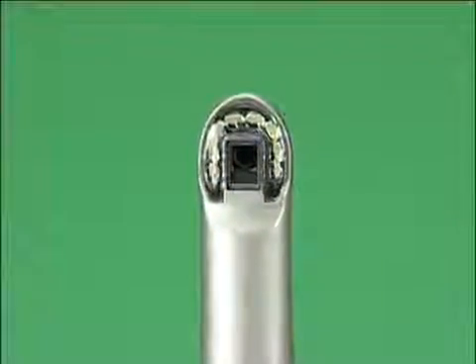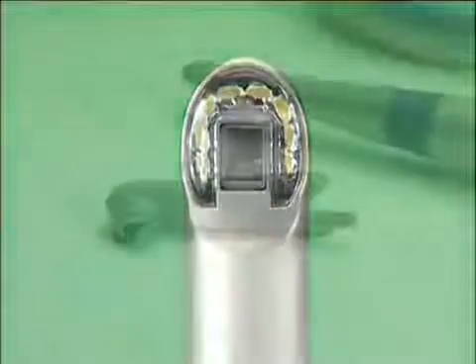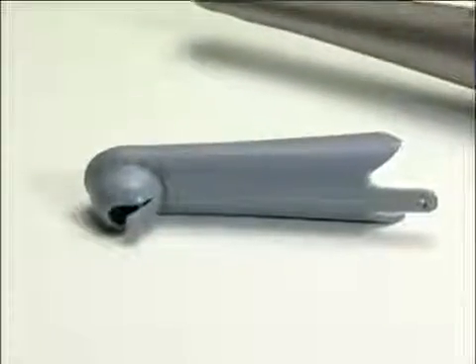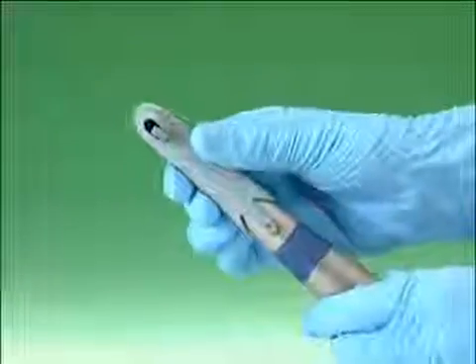The Sopro shade concept of the intraoral Sopro 717 camera is a help to the visual shade selection. The light provided by the 8 LEDs located on the camera head allows it to be totally independent from the ambient light. The Sopro tip that is clipped on the camera head will isolate the tooth from the environment, and the shade selection will no longer be sensitive to interfering colors.